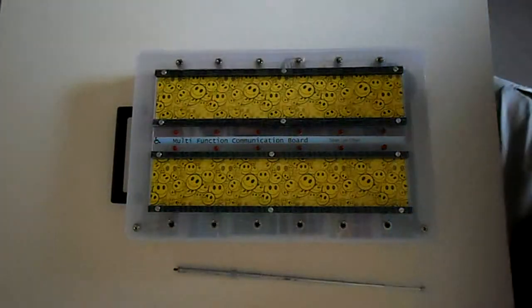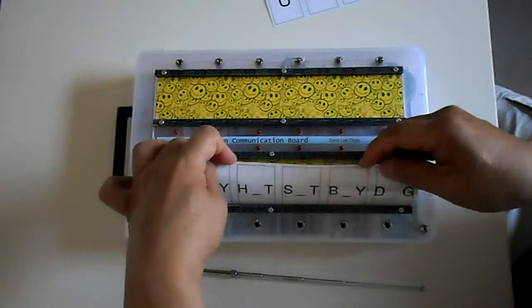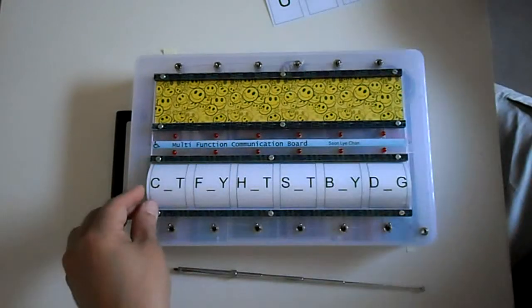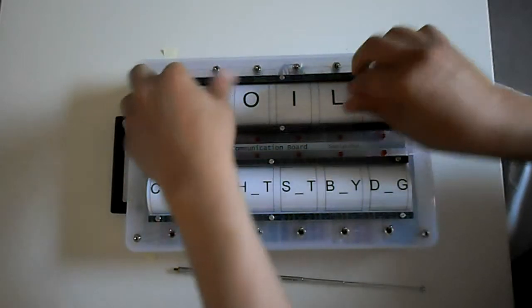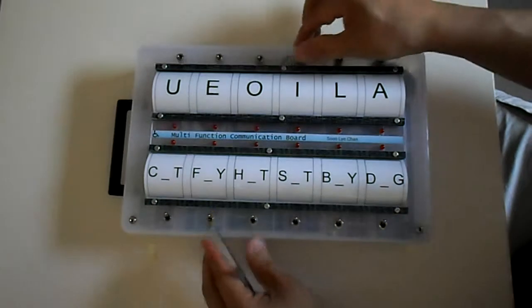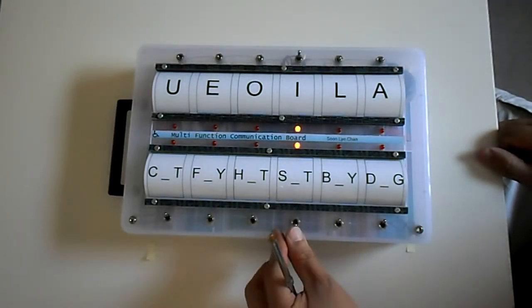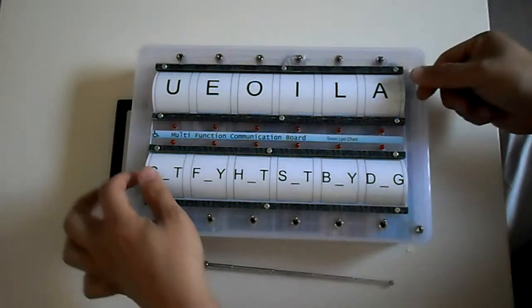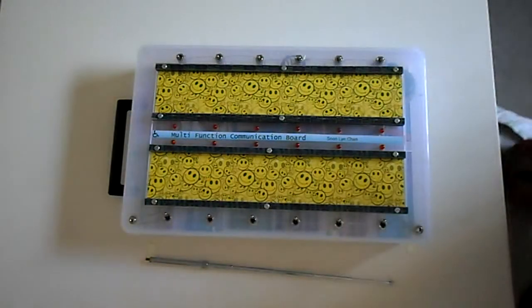Yet another example, we could just have some basic spelling. So we'll say, well, where would I fit in? And it could be sit or hit. So that's a fairly simplistic example, but what else can you do with it?